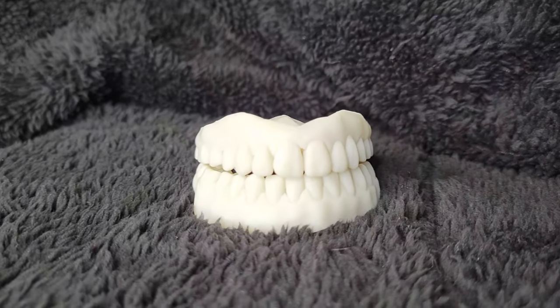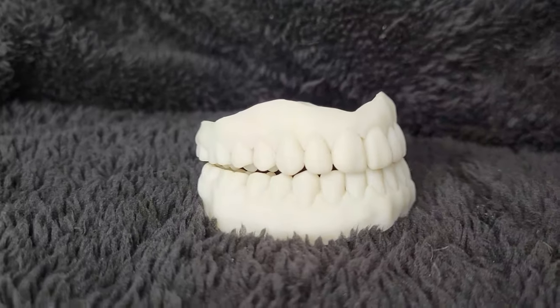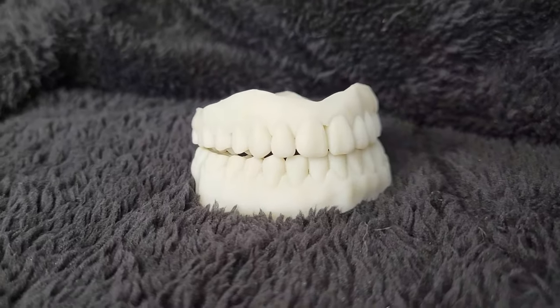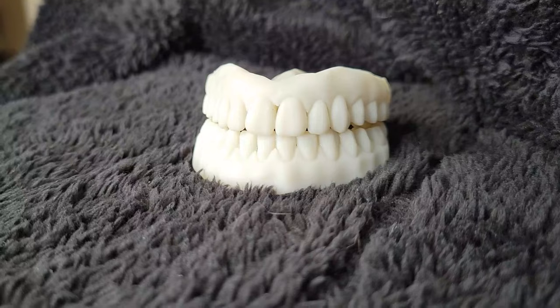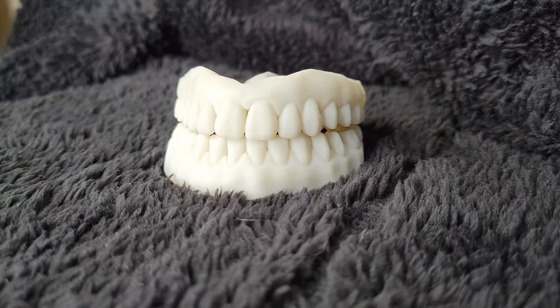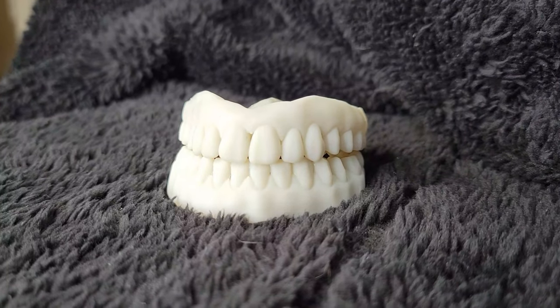I'm really excited to show you these. These are my try-in dentures from Denture Box. And if you notice, they're all white. They're not wax. Normally, when you do a regular try-in from the dentist, they're wax. These are not wax. You can't put wax in a printer — these are 3D printed dentures.